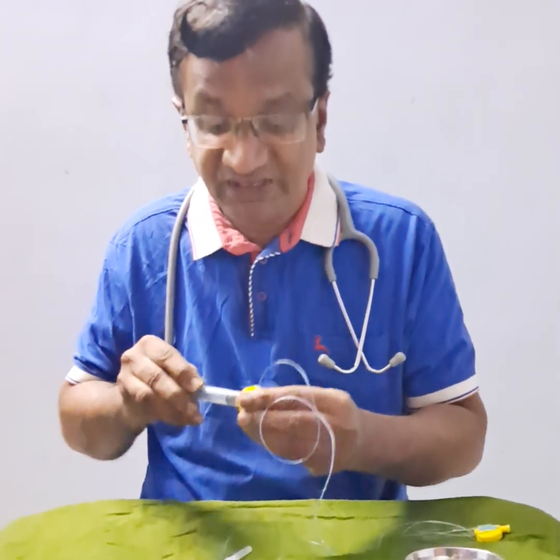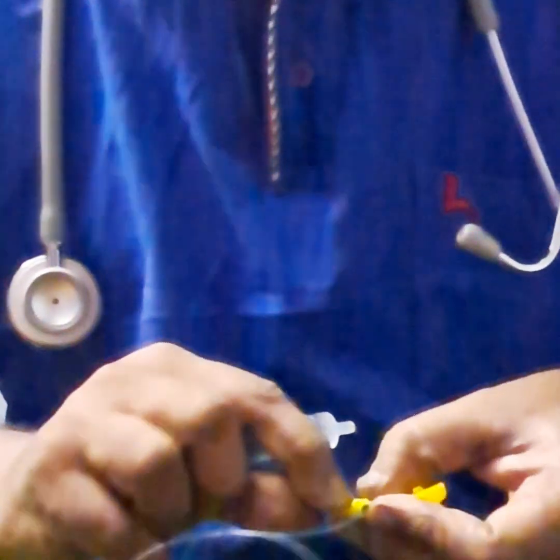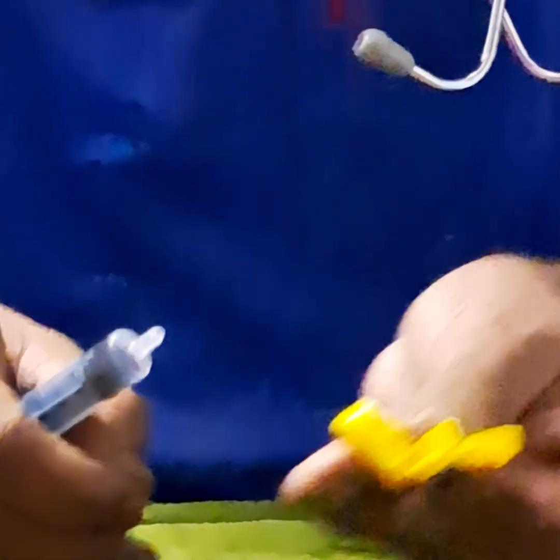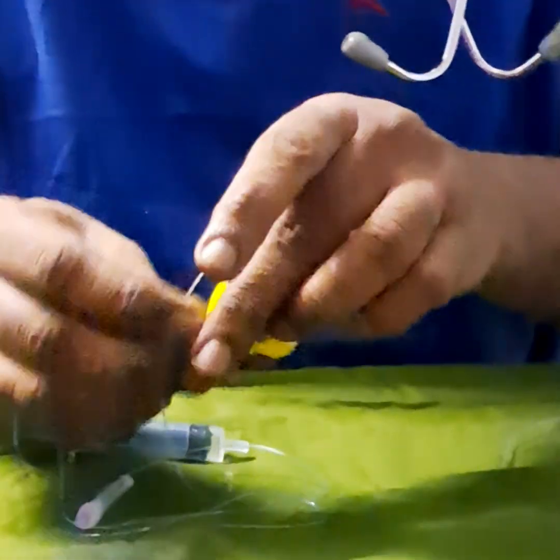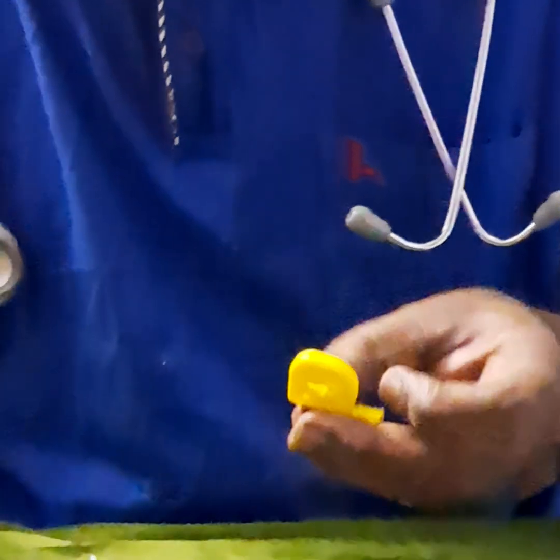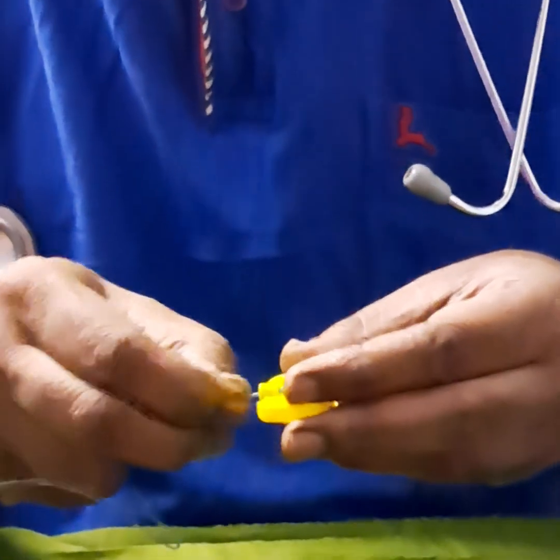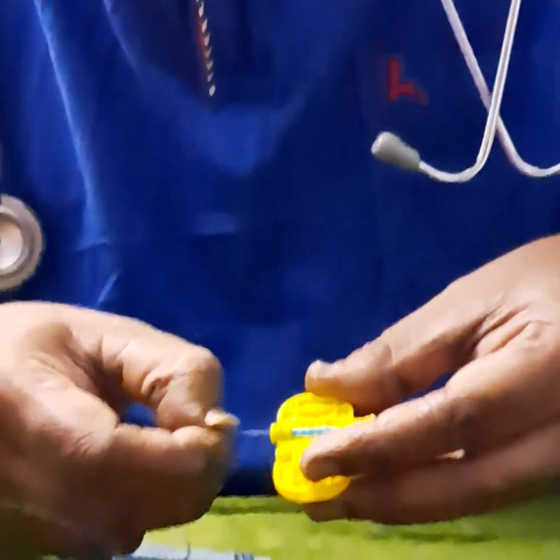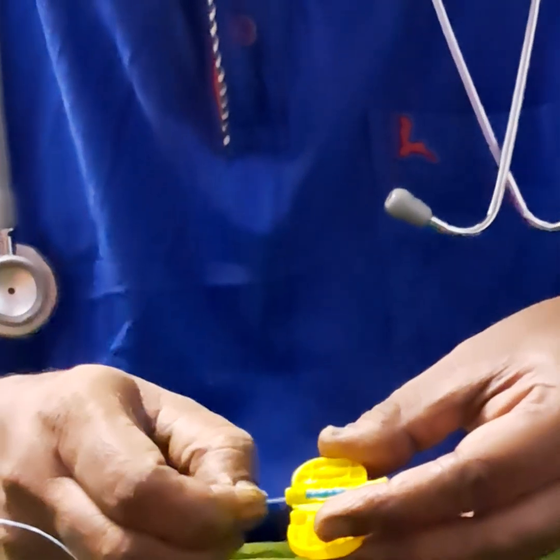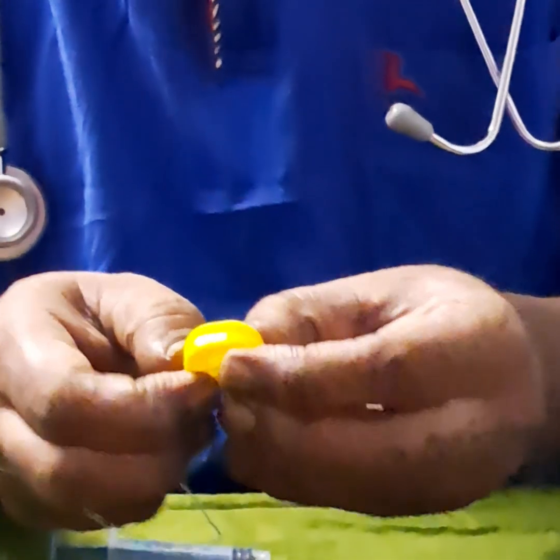This is about the anatomy of the epidural catheter — where we can see the ridges, the silicone being compressed. On this side we cannot inject, as there is only a small hole and it is very difficult to maneuver, and the lumen is slightly smaller. One more thing: there is a small ease of passage initially until it reaches the big ridges, where it becomes slightly more difficult to advance. Thank you.